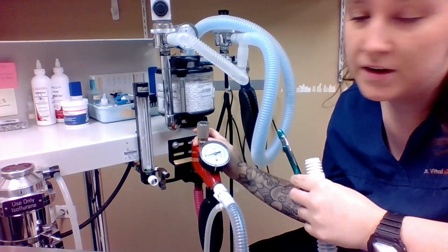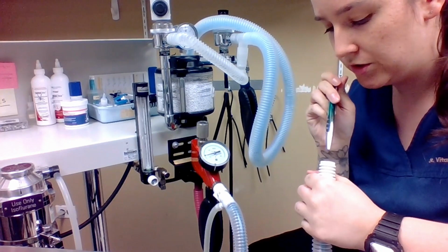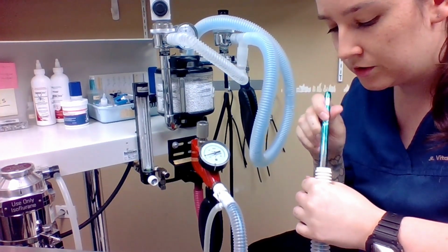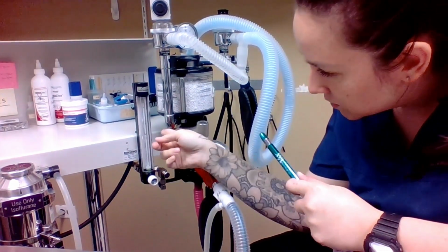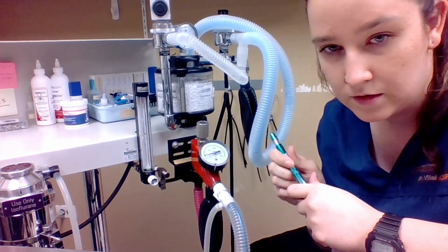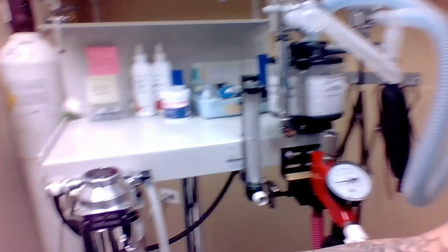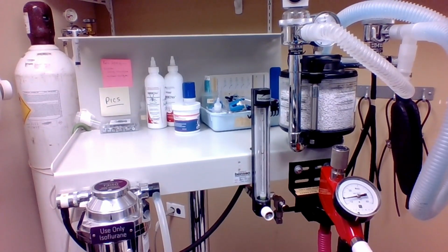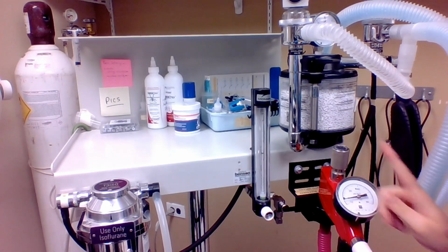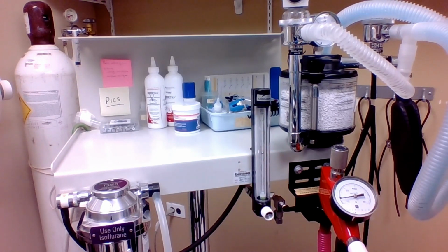We're going to keep our pop-off valve open, but we're going to put oxygen on. And then we're going to let it flow for a little bit, close off the end of this, and then as we're watching the ball, we want the ball to drop slightly, like that. So you want the ball to drop like that, and that means that the pressure has built up and it's going all the way back through our vaporizer and then into our flow meter. So there are no leaks along that system.